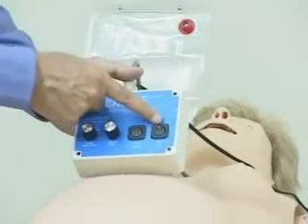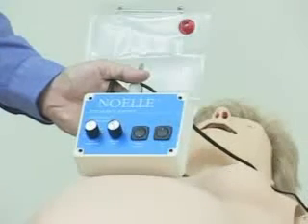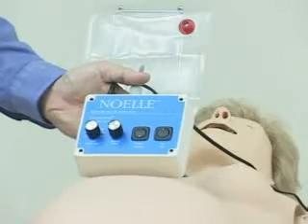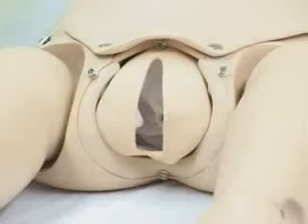Power for this unit is given by an international power supply that runs from 100 to 240 volts. I've set the delivery speed to the fastest possible and set the heart rate to 140 beats a minute. You should be able to hear the small DC motor that powers the birthing mechanism start and then stop, start a second time, stop, and then continue onward.